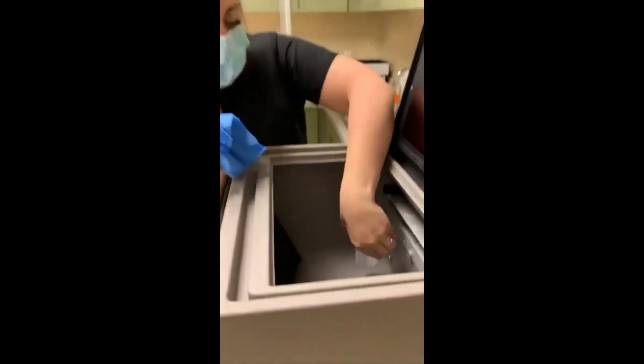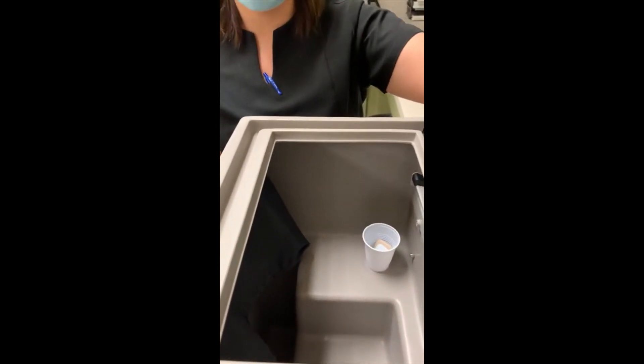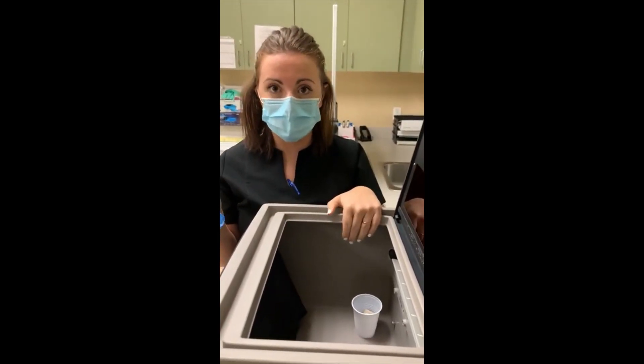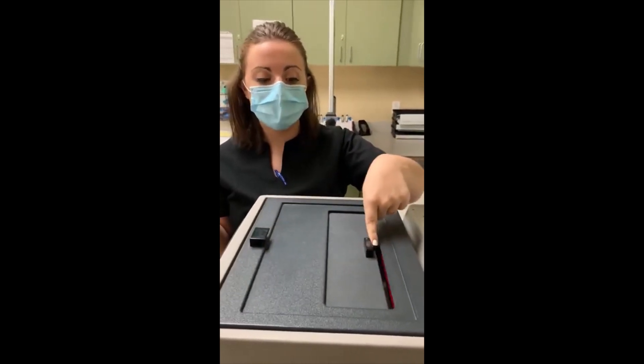On the inside you're going to place your cup right here, and then you're going to close the daylight loader. For the purpose of this video so you'll be able to see what I'm doing, we're gonna leave this open. But when you're doing it, you're gonna have this closed and you'll have this little window open.